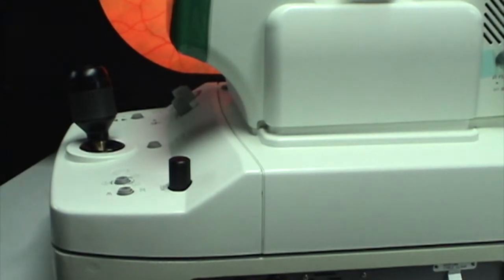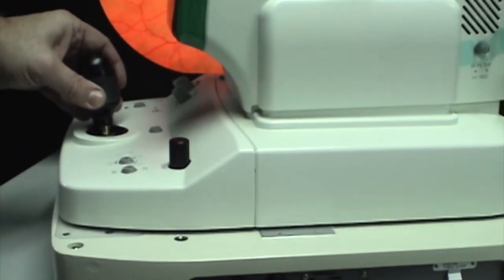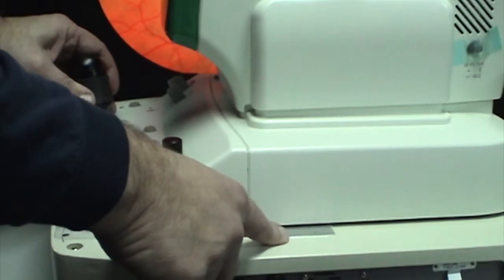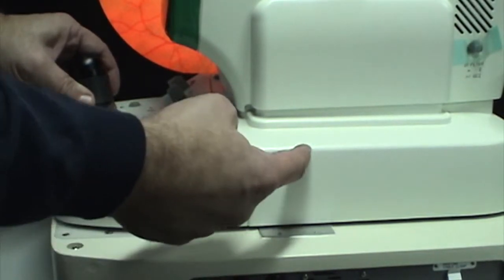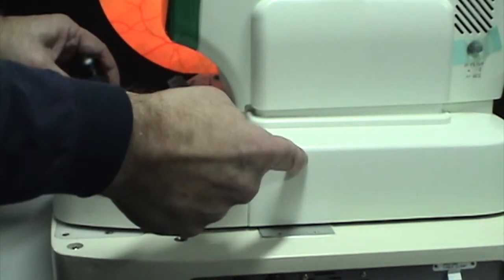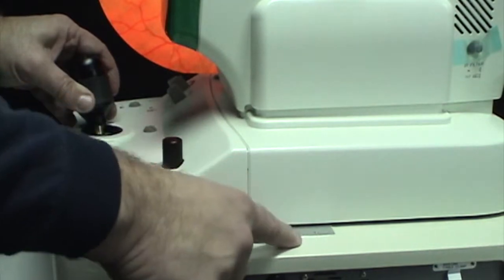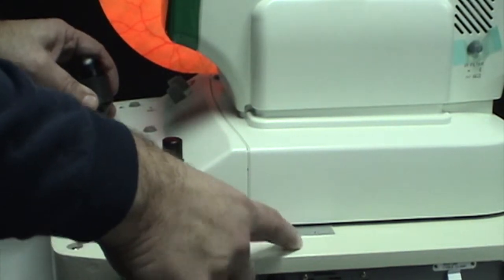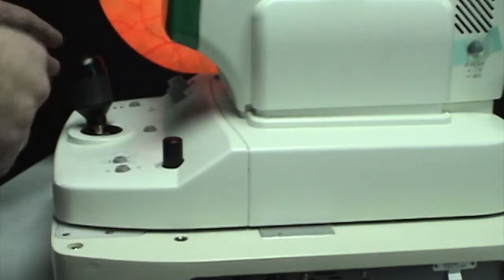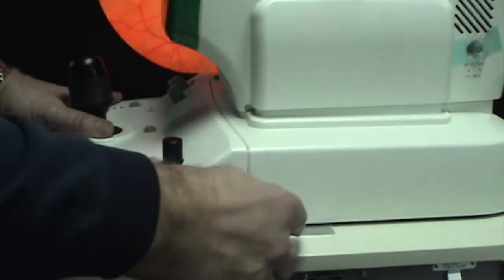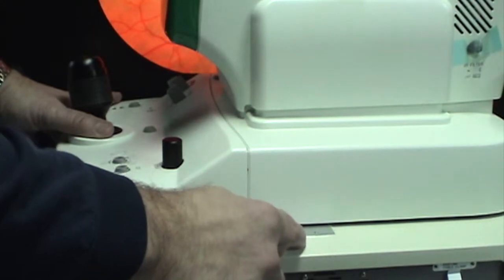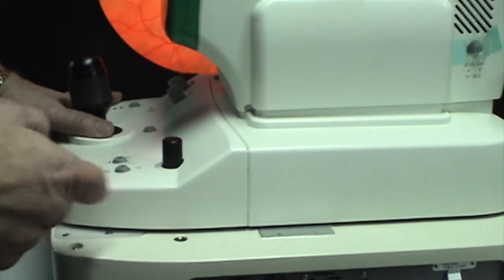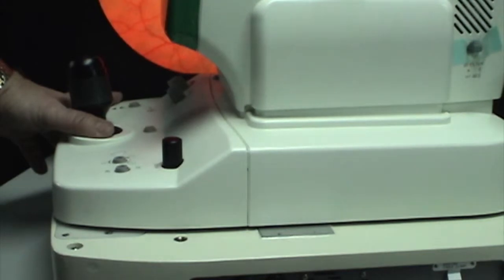As I explained earlier, when you push the camera all the way to the left, you begin to expose this plate that we just cleaned. There is an optical sensor hanging down underneath here on a metal bracket that's looking for a reflection off of this plate. This is the sensor that changes the right from the left when you move the camera. If it's not getting a proper reflection and you've already cleaned the plate and that didn't solve your problem, it's possible that the sensor is also dirty.